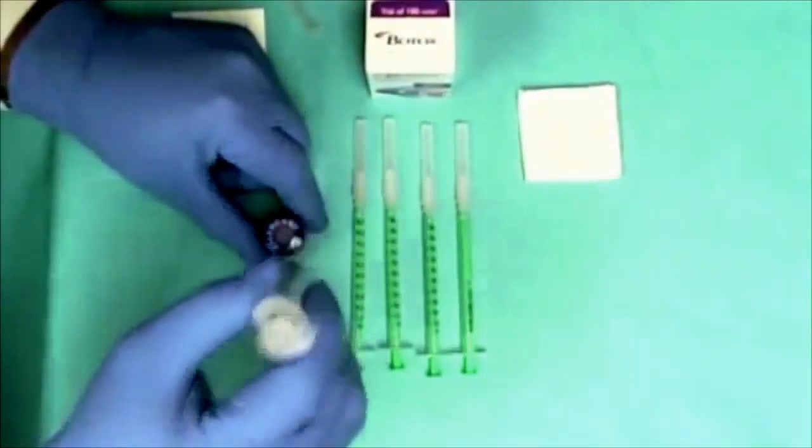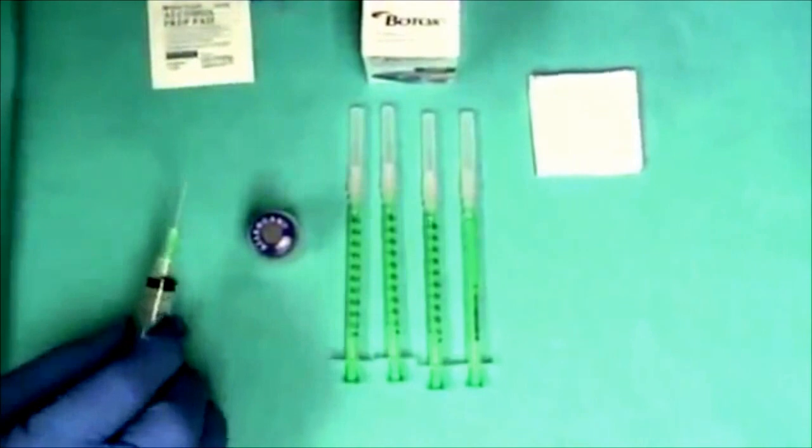Circular movements are enough to reconstitute the material. Do not shake it.